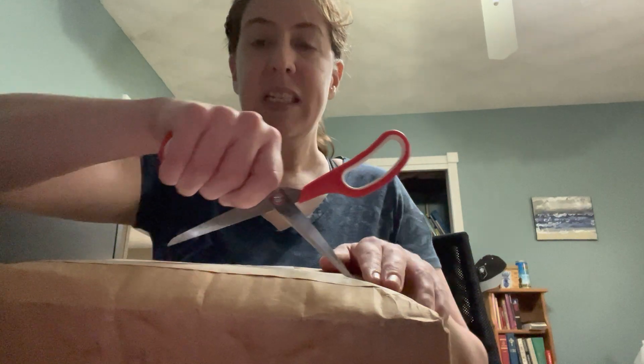I'm already set up to be trained on the pump — next Thursday, so a little over a week from now. But I thought I would go ahead and see what we have in our introductory kit.